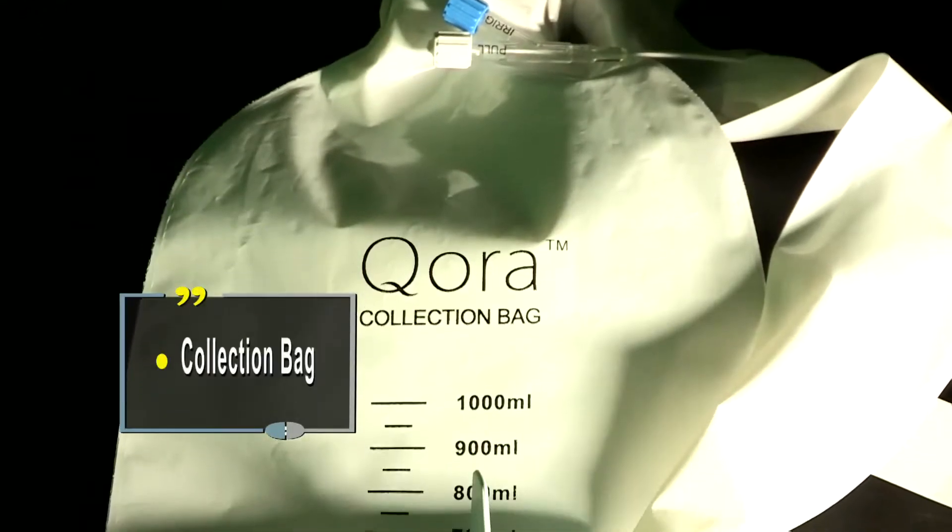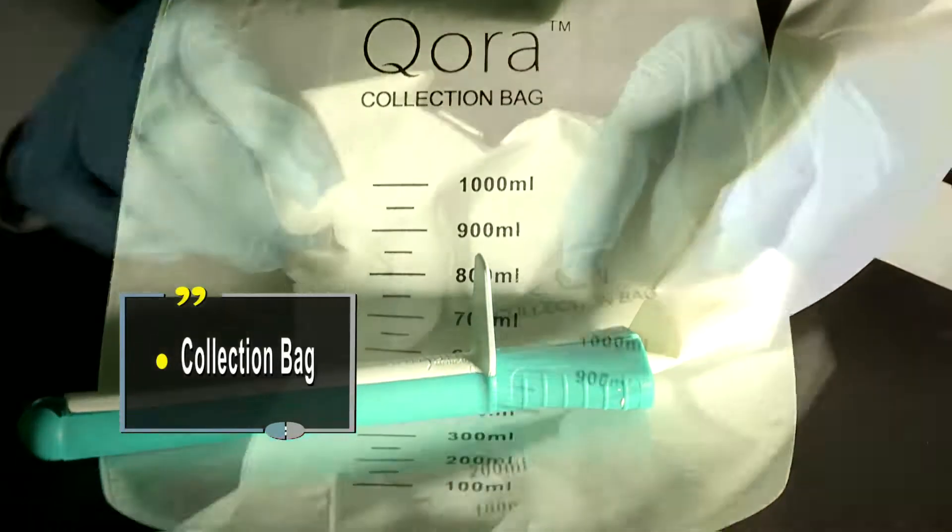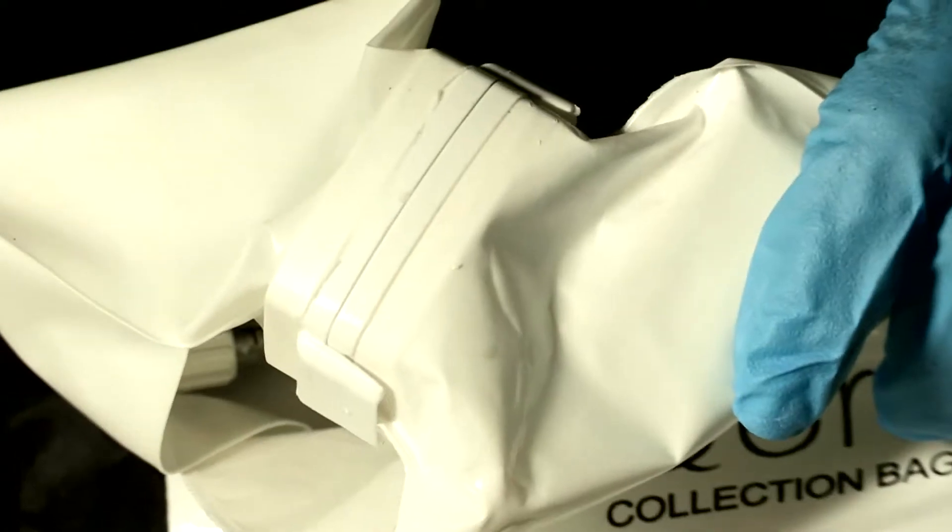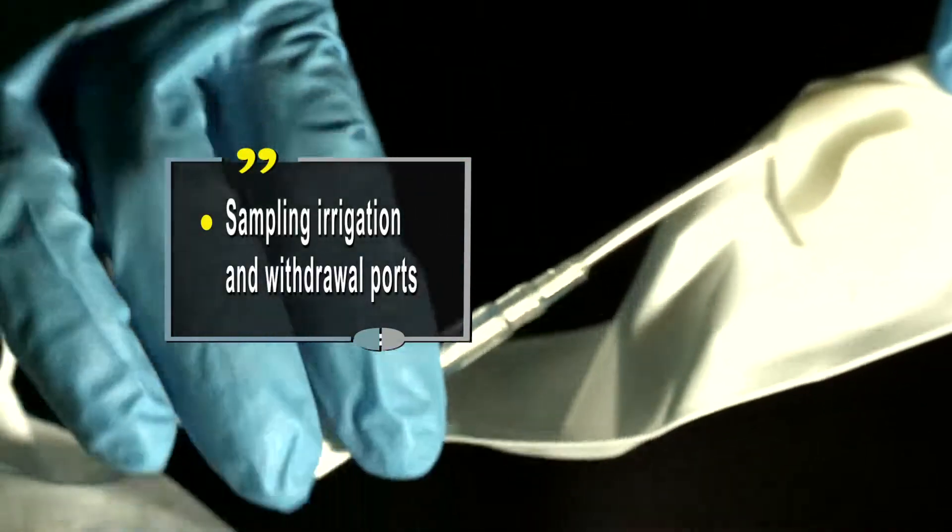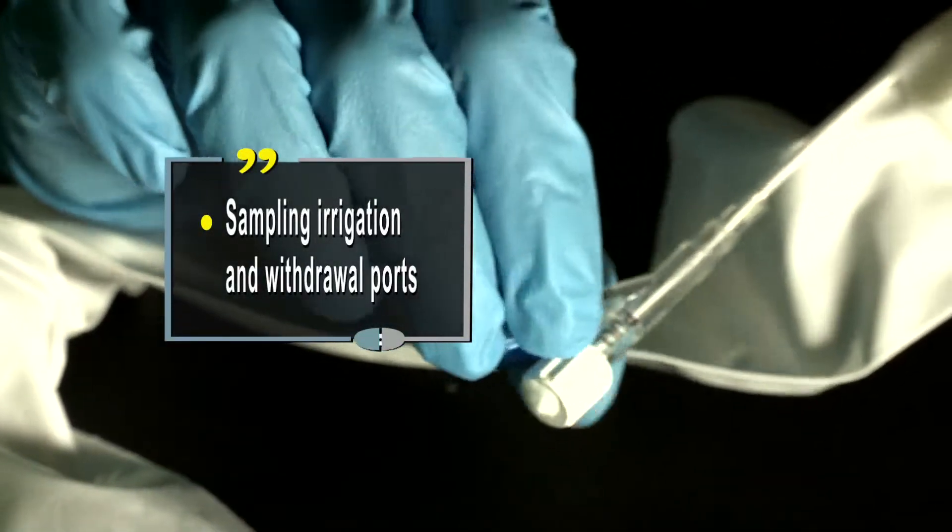The collection bag is odor proof and is integrated with a unidirectional valve which prevents accidental soiling. And these are built-in sampling, irrigation and withdrawal ports for easy and accessible clinical care.